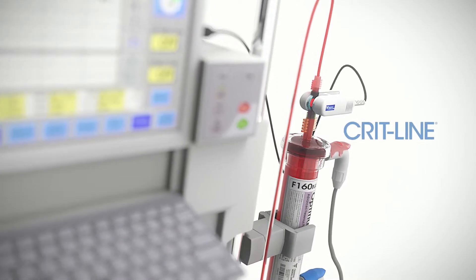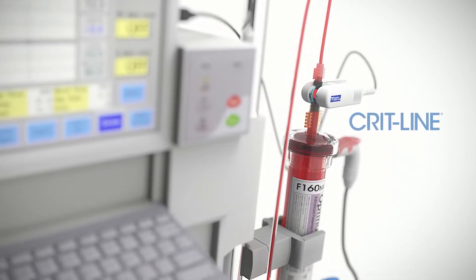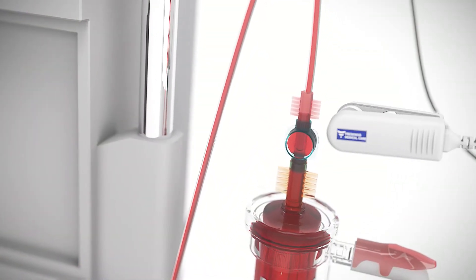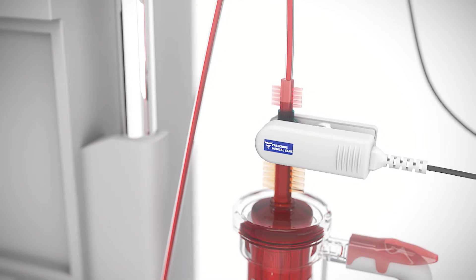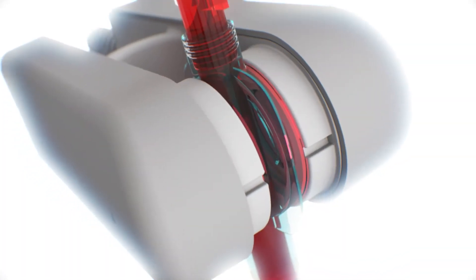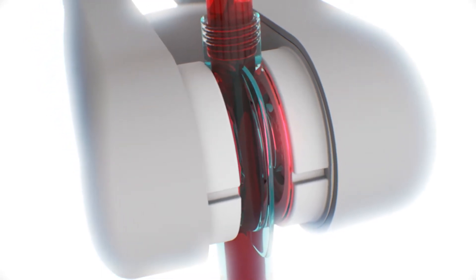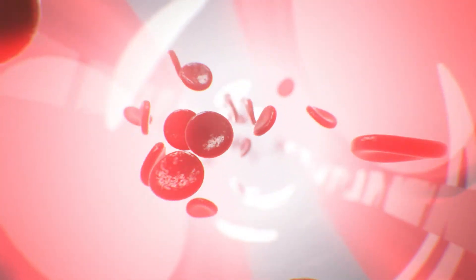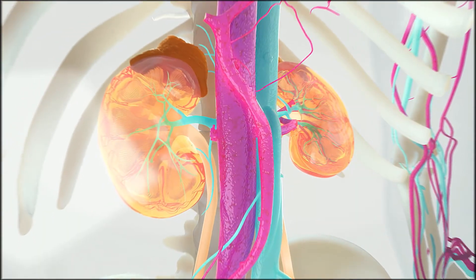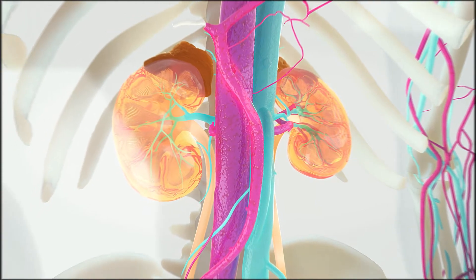CRITLINE technology can continuously and noninvasively measure these parameters to limit intradialytic symptoms. During dialysis, a CRITLINE sensor clip is attached to a blood chamber between the arterial bloodline and the dialyzer. Optics within the sensor clip can emit multiple wavelengths of light, illuminating the blood as it passes through the chamber. This allows measurement of hematocrit, percentage change in relative blood volume, and oxygen saturation. These measurements are displayed on a monitor and updated in real-time throughout the treatment.